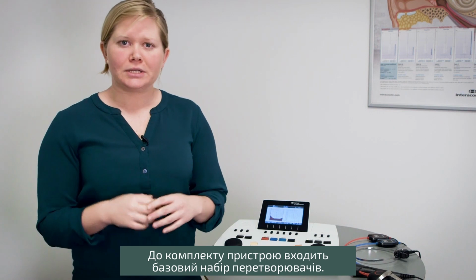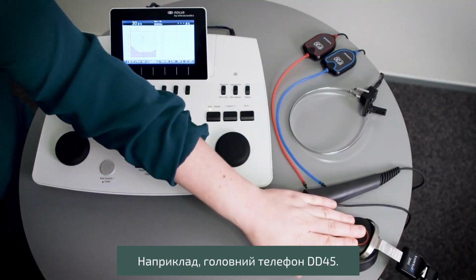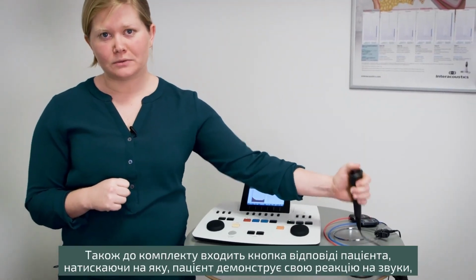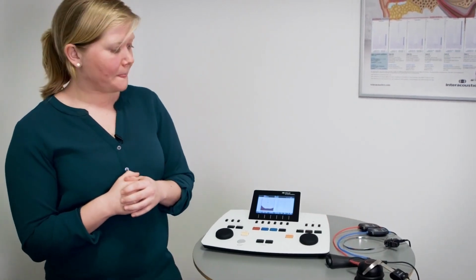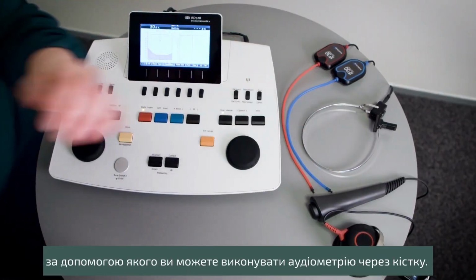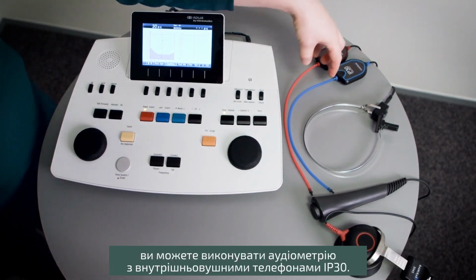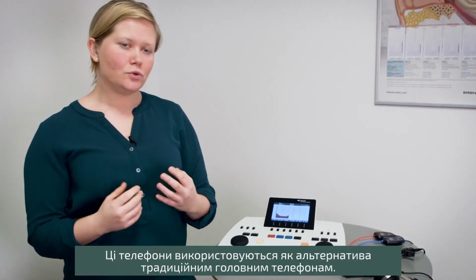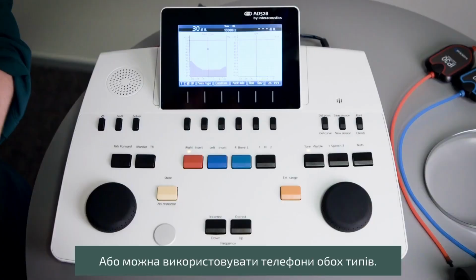Together with the device you get a default set of transducers, for instance the DD45 as a headphone. You also get a patient response so that you can have the patient respond to the sound and see that on the device itself. Then you get a bone conductor, so you have the opportunity to obtain bone conduction audiometry with it. In case you want to use insert headphones instead, that is also an option with the IP30 insert headphones. They can be used as an alternative to the traditional headset, or you can use them side by side in your clinic.